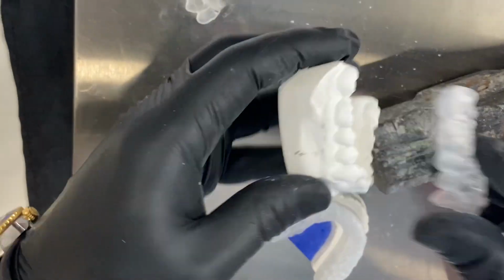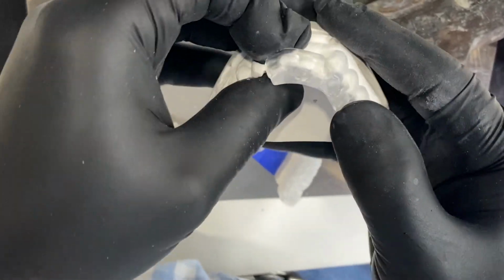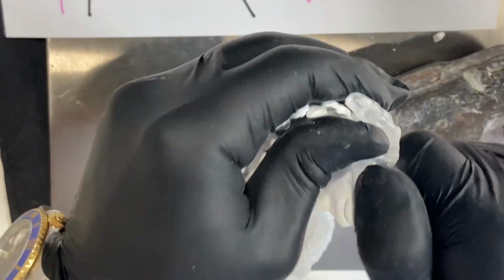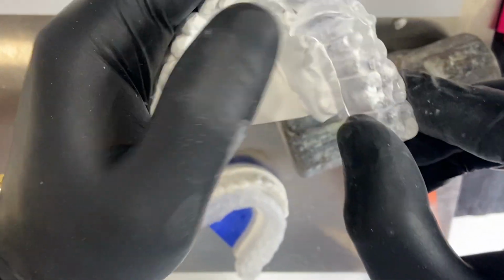If a patient has an orthotic in the mouth, and let's think that this is a whole piece, and the patient removes only one side because the orthotic, let's say, is too tight, that is going to create a fulcrum in the orthotic that is going to have the tendency to try to break it in half of the occlusal table. Why?